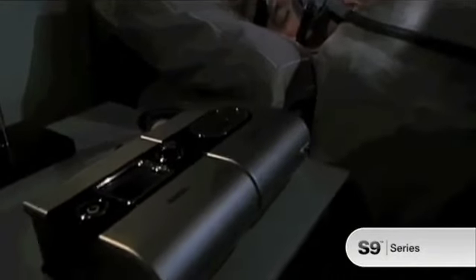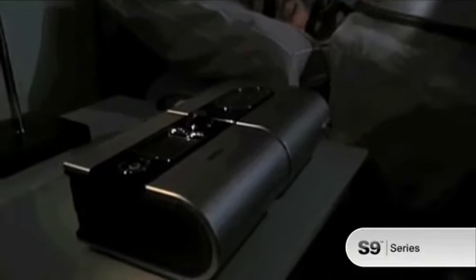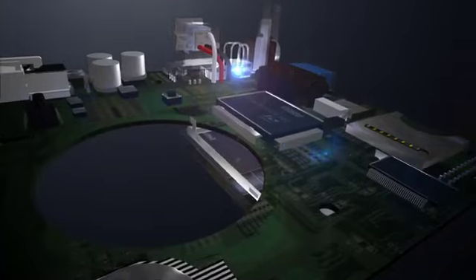The gold standard in automatic sleep therapy, ResMed's Autoset Algorithm, has just been enhanced in the S9 series.